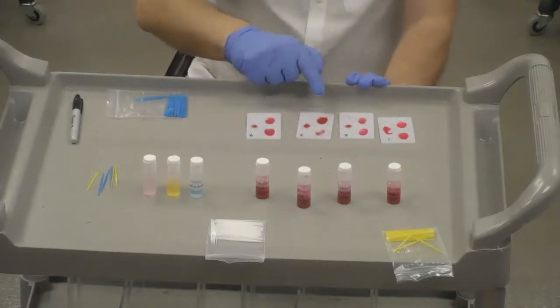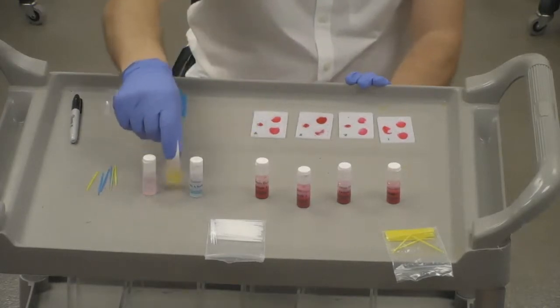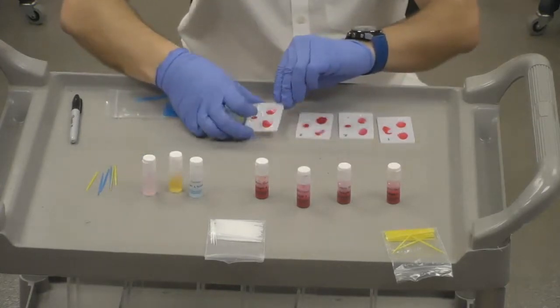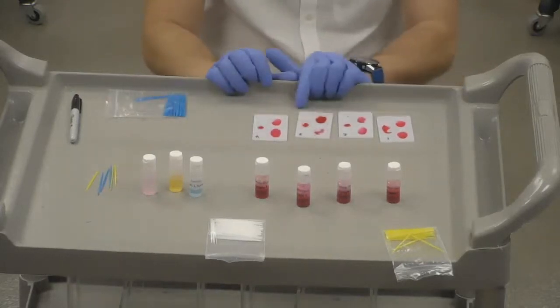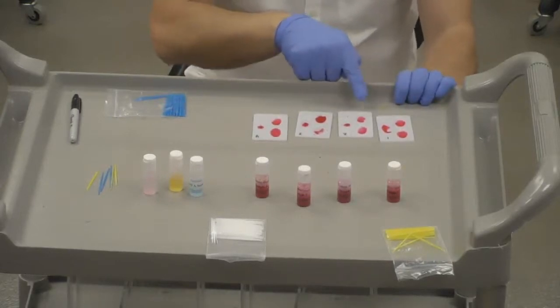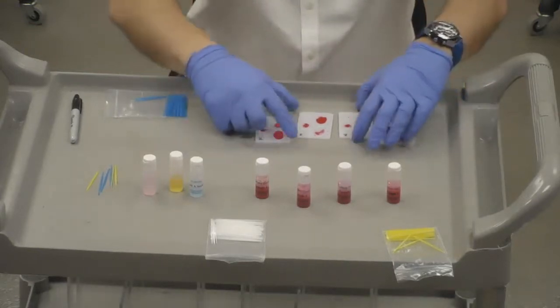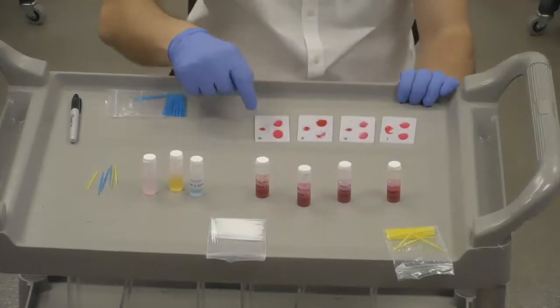So now we're moving on to the last one. And the last one, we are doing tipping, and we see no clumping going on in this one. Okay? So just to reiterate, sample 1, 2, 3, 4. 1 has no clumping, 2 has clumping, 3 has clumping, and then 4 has no clumping. Okay? For B.